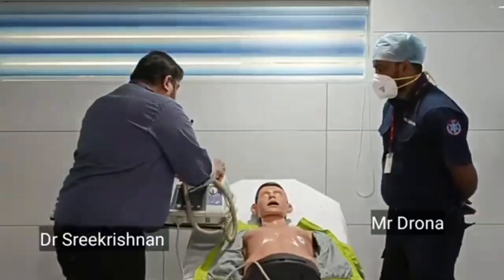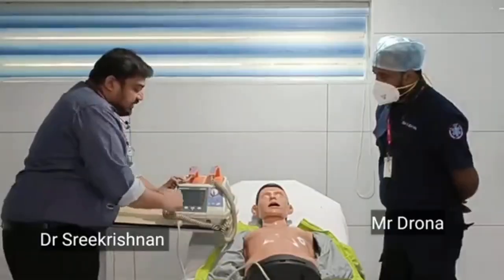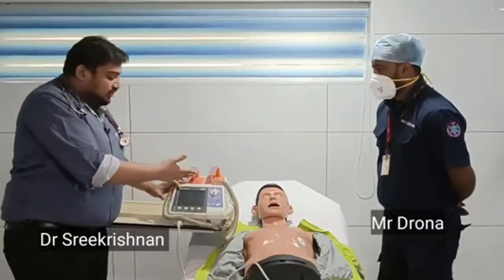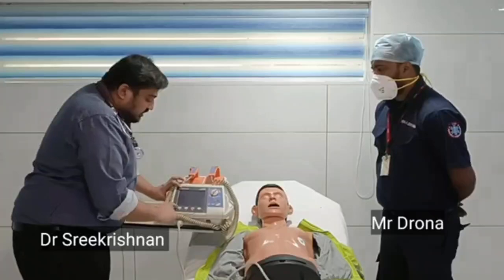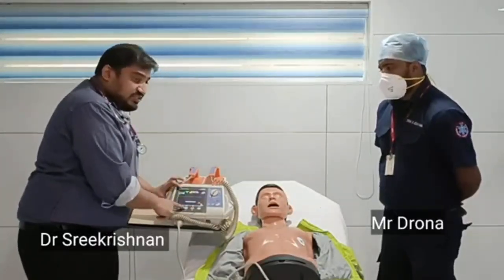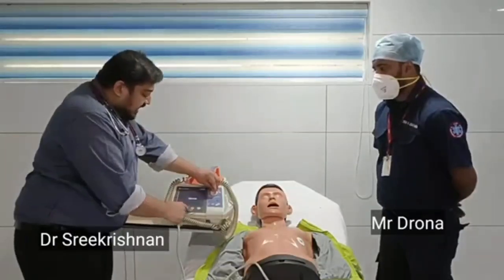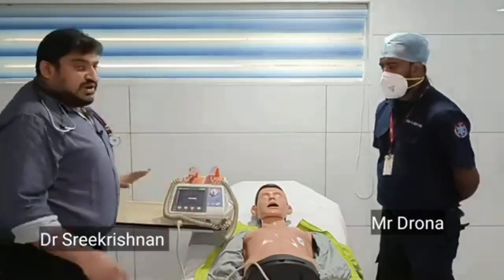So these are the two paddles, and you will have a monitoring area like this where all the heart rhythm will be shown. You have a switch on and switch off, and you will also have a knob to turn around where you can select the joules of energy, however many joules you want. And again you have certain switches here. This is for selecting the lead, and for improving the sensitivity. Sensitivity means the size of the lead, the size of the ECG. You can increase it by pressing the sensitivity button, and again you have an alarm switch. So these are the common parts of a defibrillator.